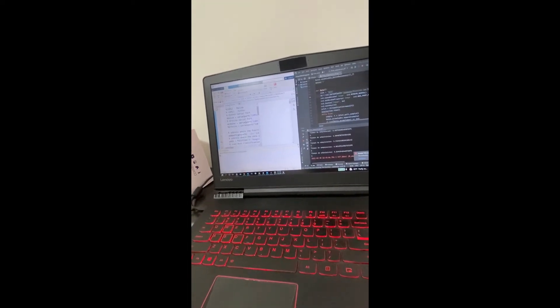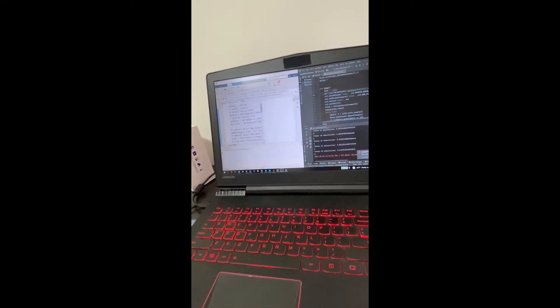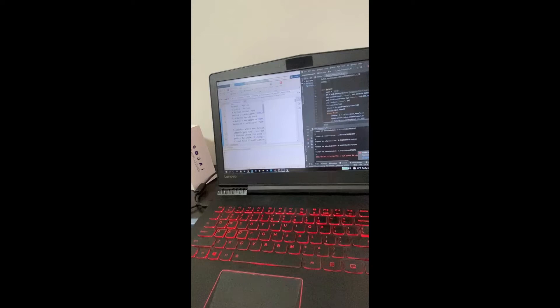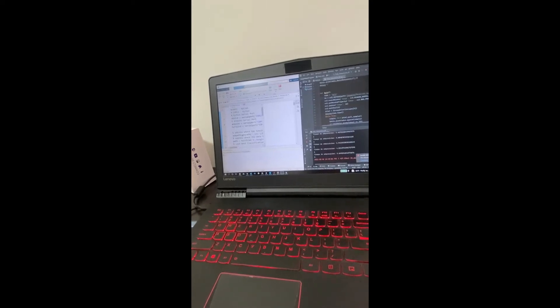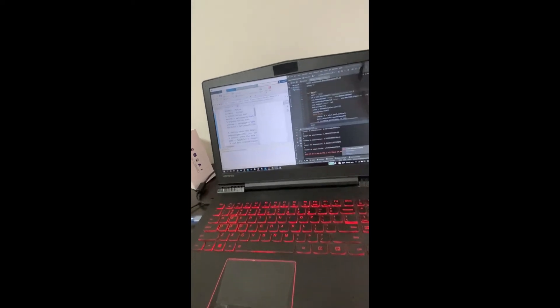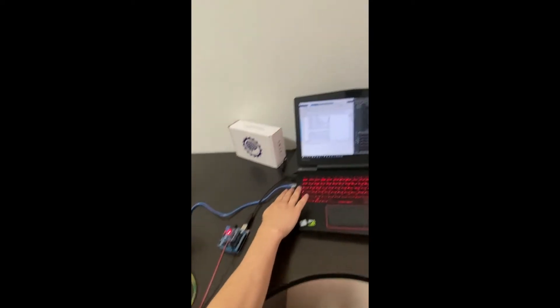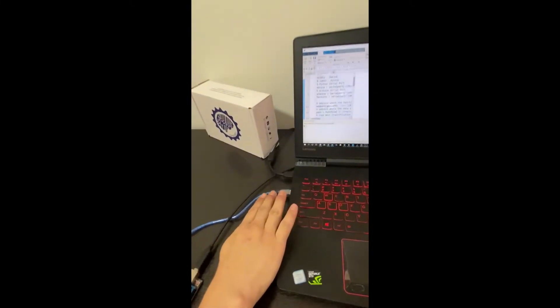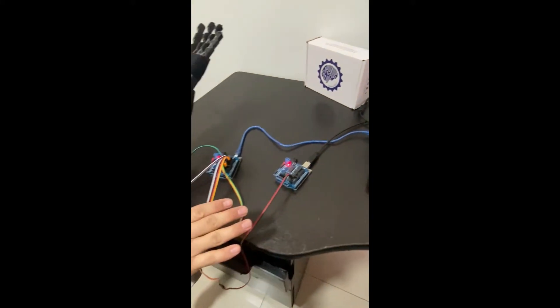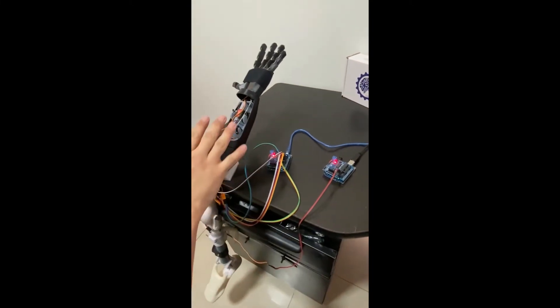The classifier was previously trained with 21 volunteers. MATLAB then commands, through a physical serial port, two Arduinos: one Arduino controls the prosthetic arm, and the other Arduino controls the prosthetic leg.